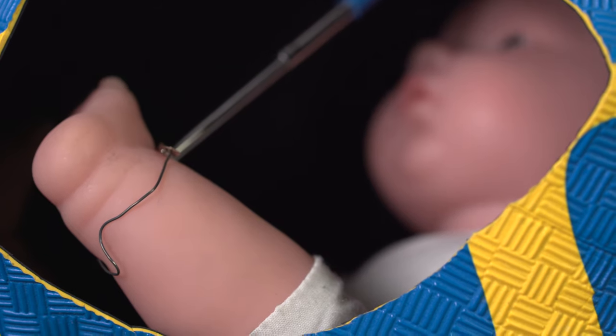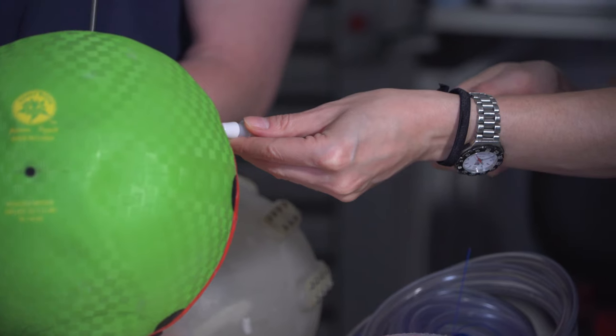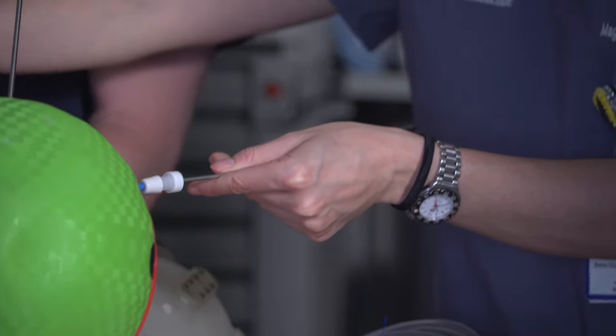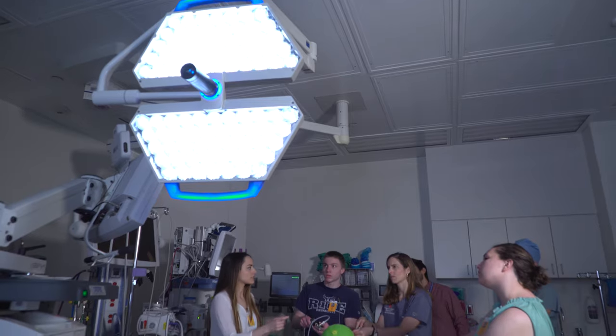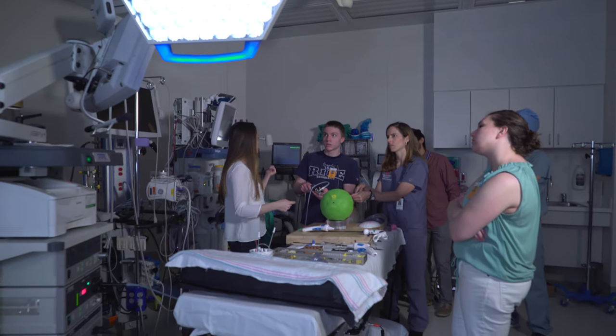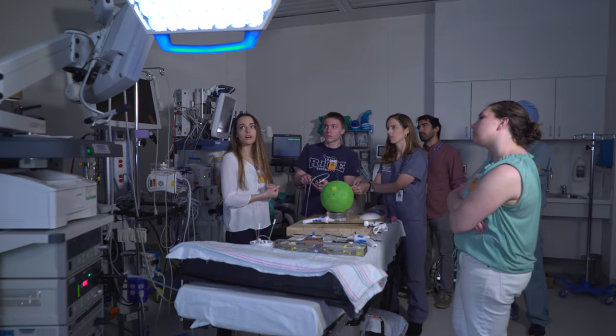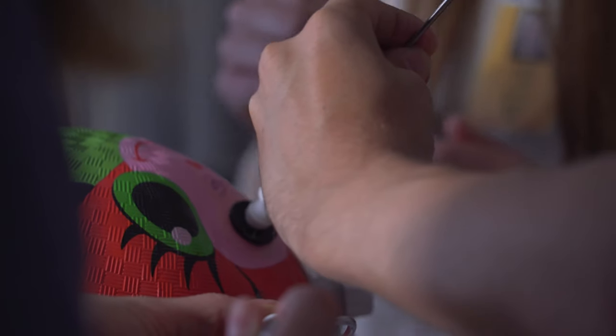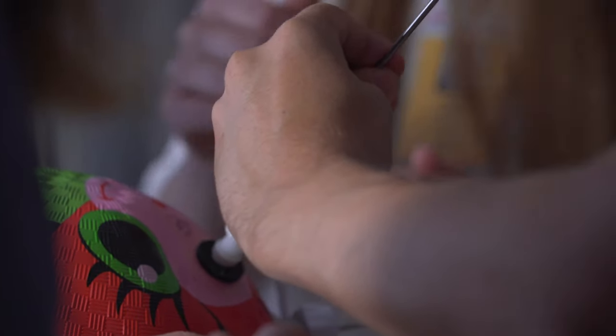We're really concerned with the safety of our device, the safety of the fetus, so we've taken all possible measures to make sure our manufacturing fulfills those safety standards, but we also prepared a very thorough document with considerations for the people taking this project forward. This is just a proof of concept, and it's just a prototype.